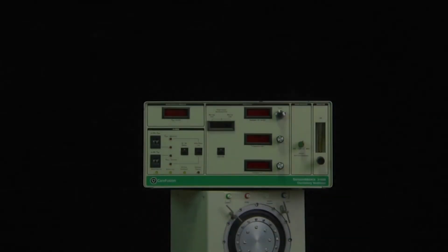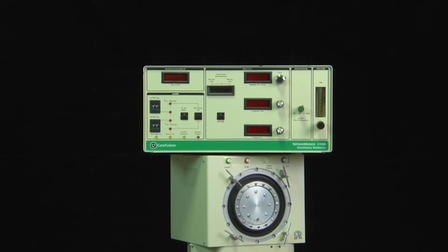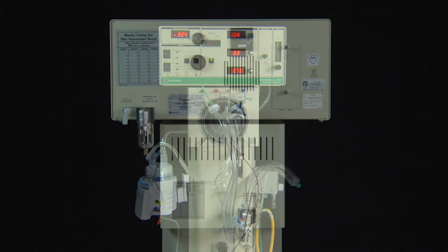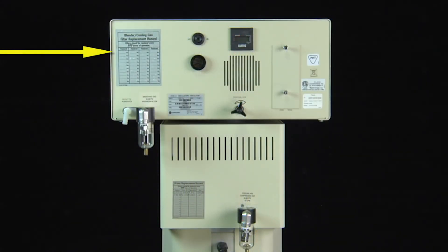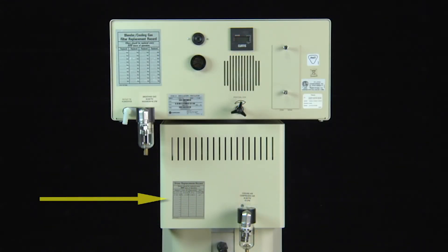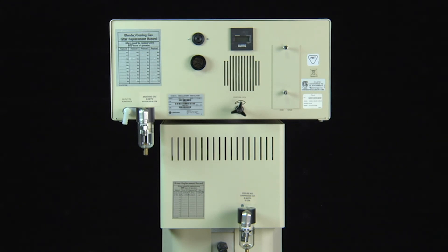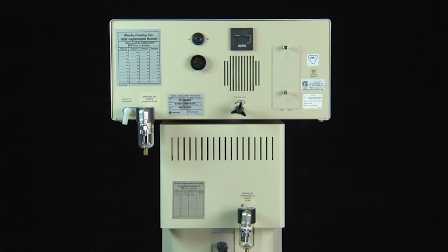The 3100B is comprised of two parts: the head and the ventilator body. On the back panel, the blender cooling gas filter replacement record and the driver replacement record are provided to assist service personnel in the proper maintenance of the ventilator.